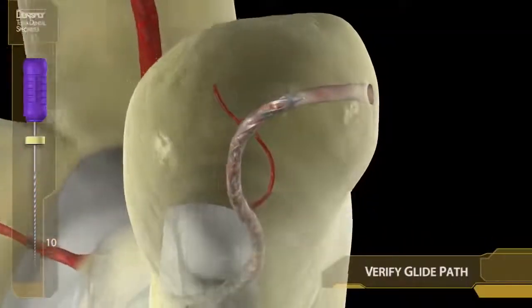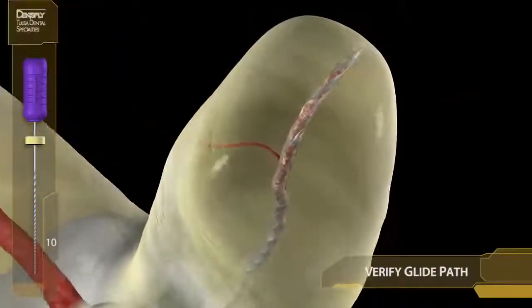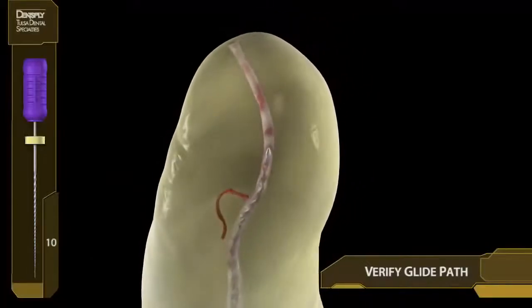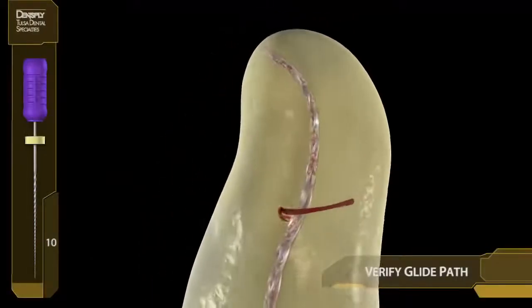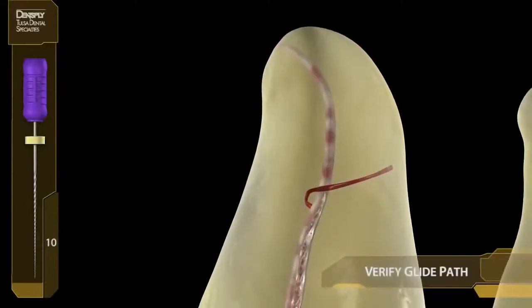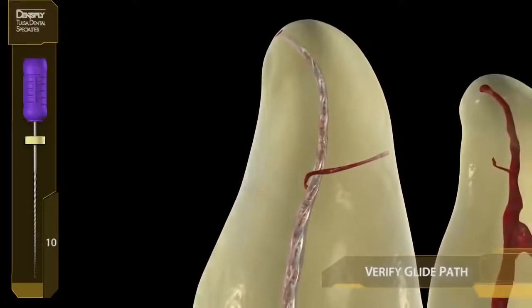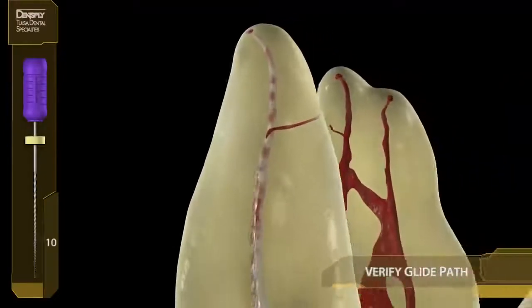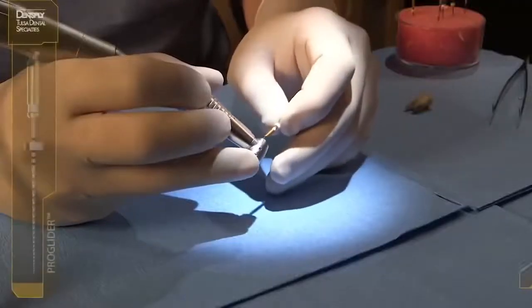NITI doesn't care as long as the walls are smooth. In vertical strokes with increasing amplitude over the traveling distance of the apical third, the #10 file is followed and withdrawn until it is loose as a goose and we literally own the glide path.